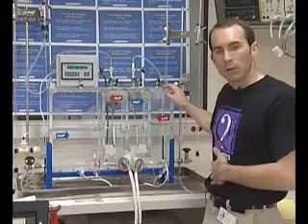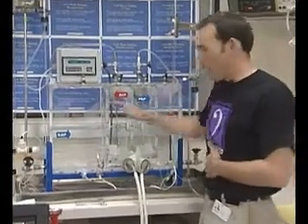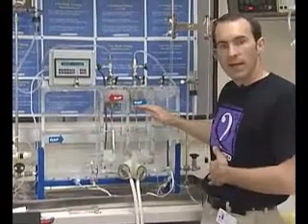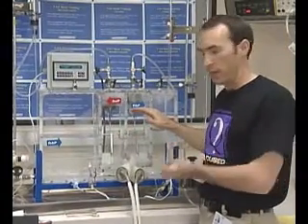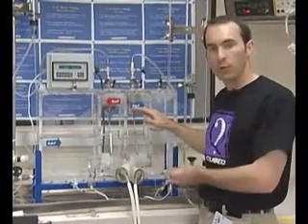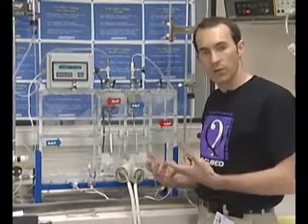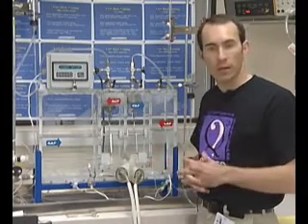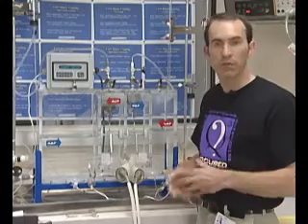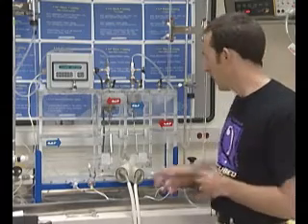So what is the mock loop and how does it work? It represents the pressures of the natural human body so that while we're in the laboratory, we can create certain scenarios that we might see on a patient, so that we can train and know how to facilitate those.